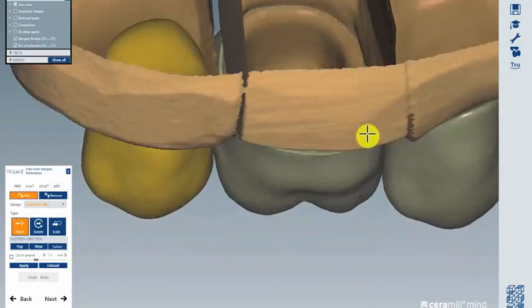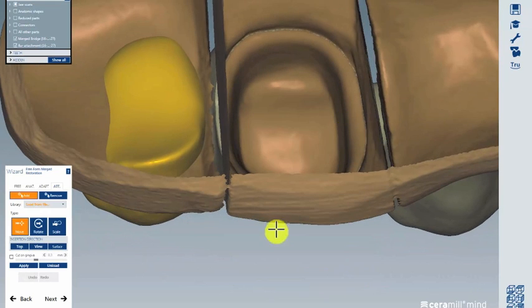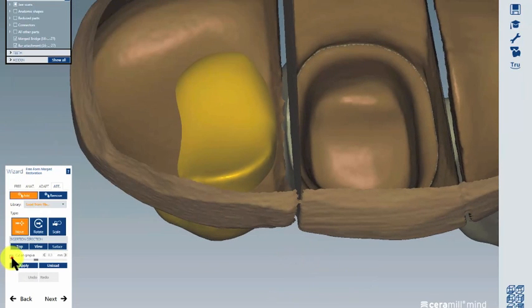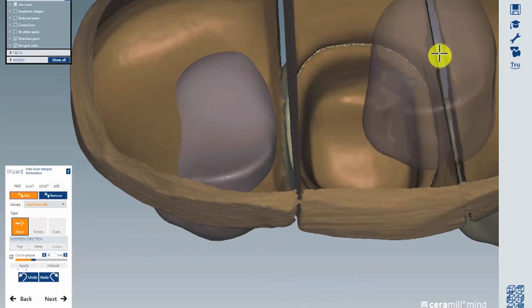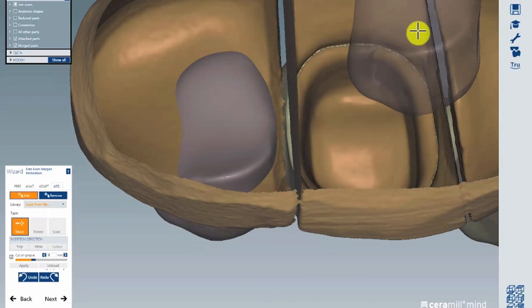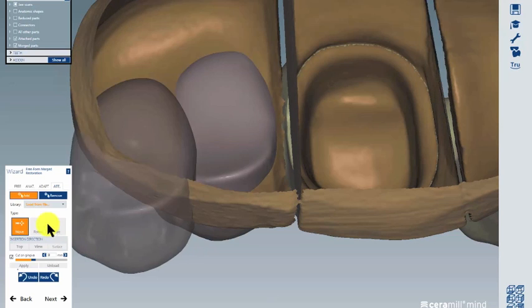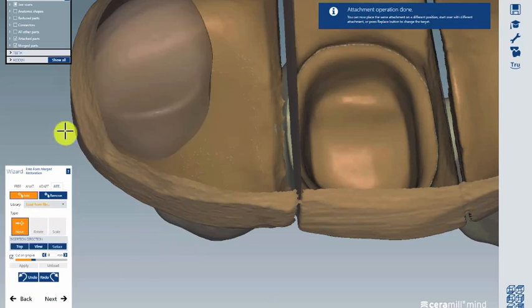Note that the pontic is currently looking through the jaw. You have to cut on gingiva—select your value, for example 0.0, and click Apply. Watch what happens. We get a message on the right side that the operation is done.